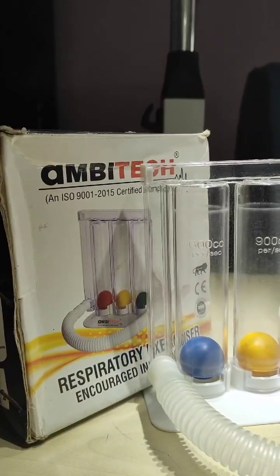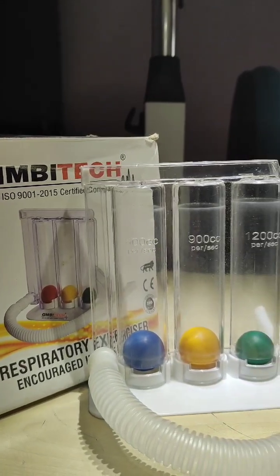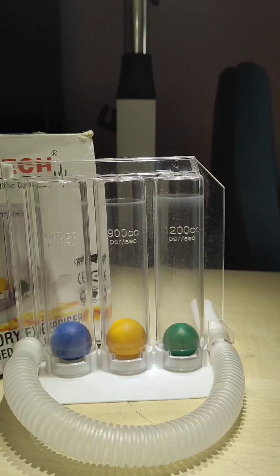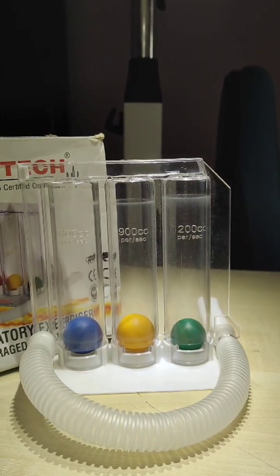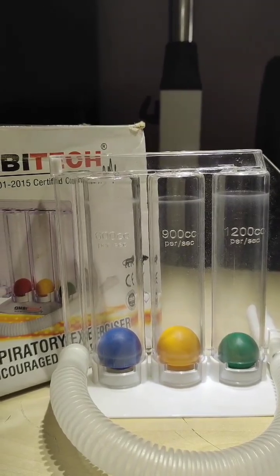Today let us talk about the Respirometer, a simple and powerful tool to improve your breathing efficiency. This device helps monitor and enhance your lung capacity through focused inhalation and exhalation exercises.